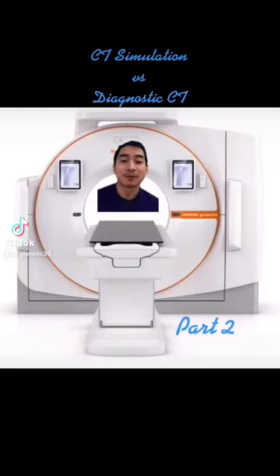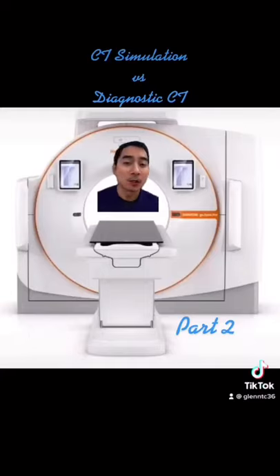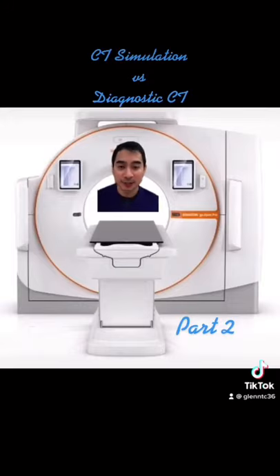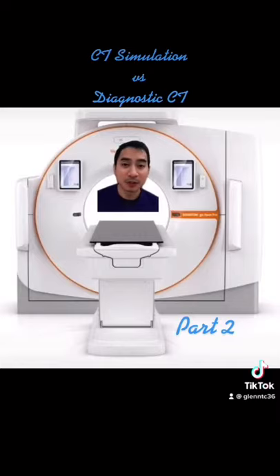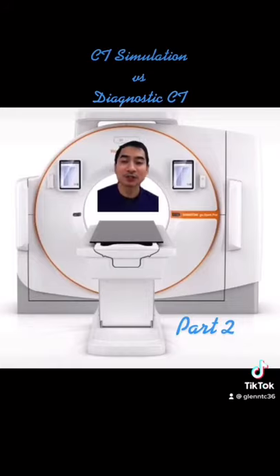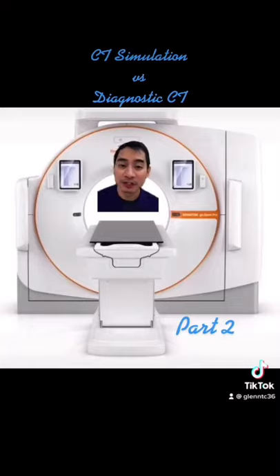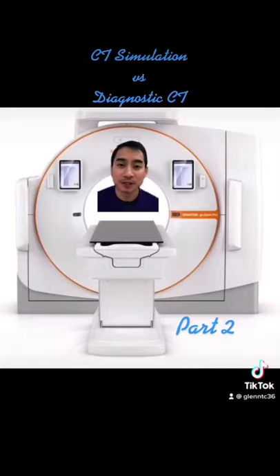What are the differences of CT simulation from a diagnostic CT? Although CT simulation and diagnostic CT use the same CT scanner to acquire images, the images from the CT simulation are used by the radiation oncologist for the planning of radiation treatment, while the images from the diagnostic CT are used by the radiologist to interpret or to diagnose a patient condition.